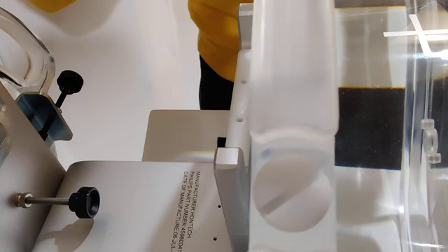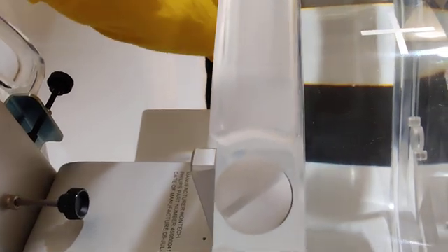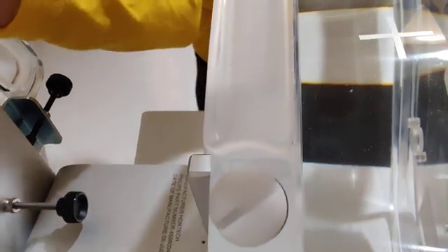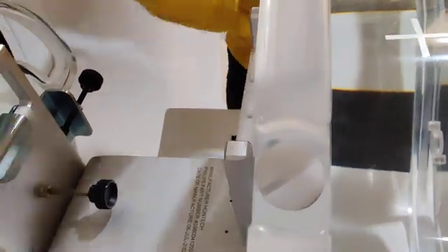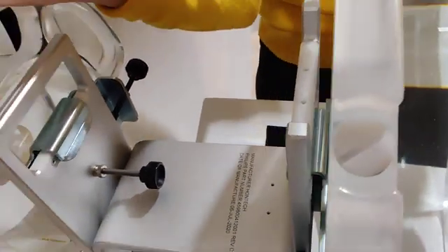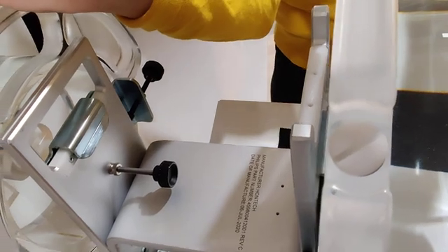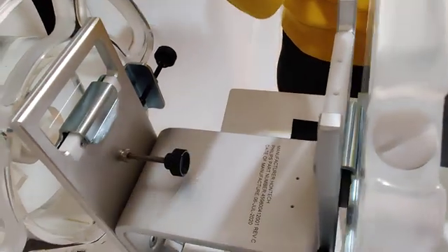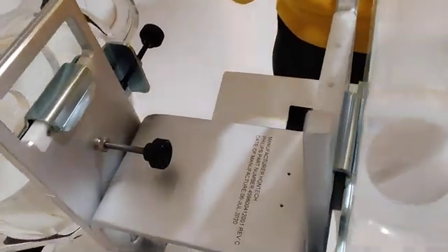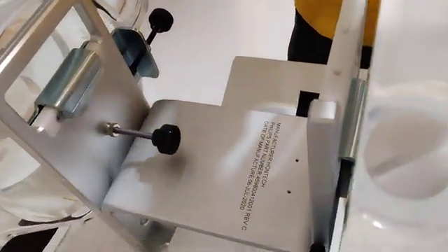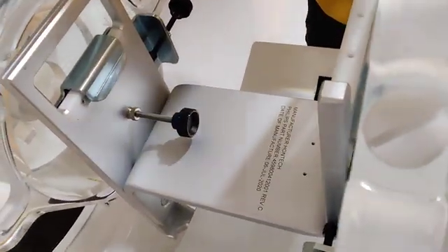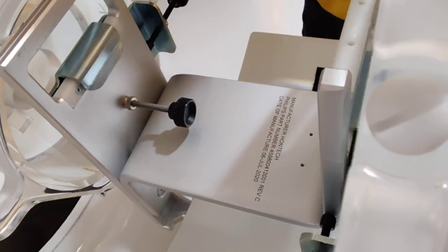Because then they weren't actually centered. They weren't centered in the gantry - they were only centered on the laser, but the laser wasn't centered in the gantry, right? So then it was off center, but that's internal.